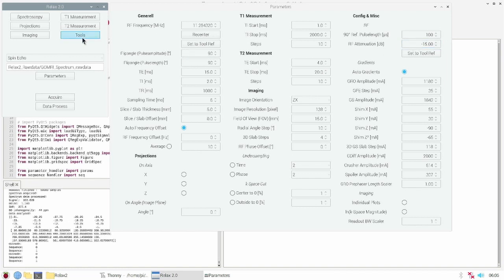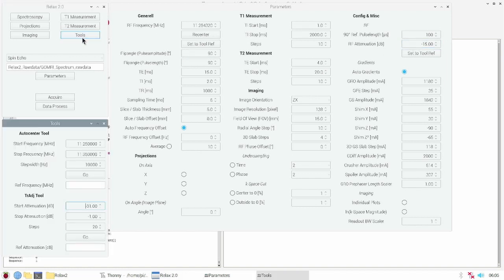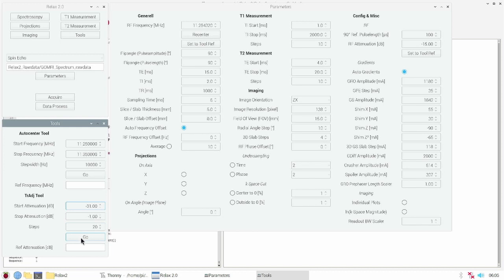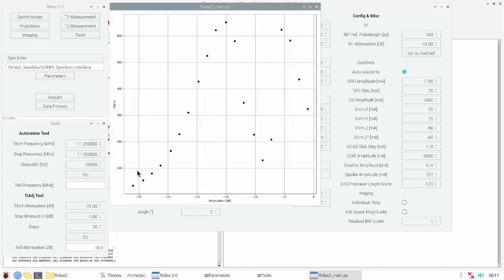To make it easy we can use the transmit adjust tool. In the transmit adjust tool you can set the attenuation range. The programmable attenuator on the Ocra 1 has a range from minus 31 to minus 1 dB. We set about 20 steps and press go. After the measurement time the results will appear.